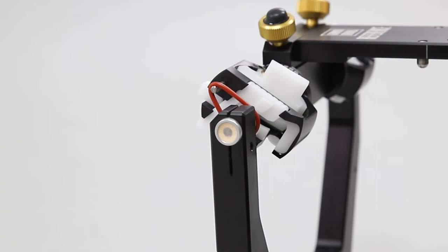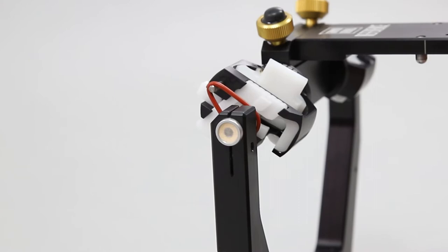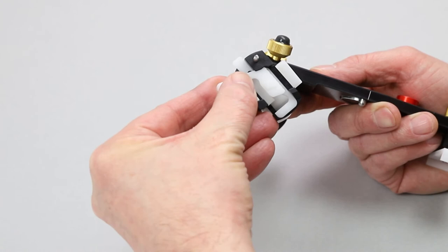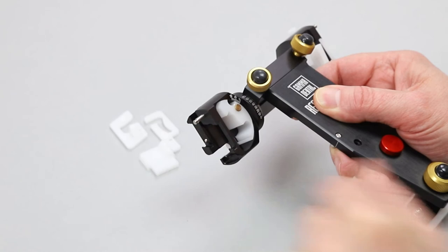For difficult guidance situations, you can use the red O-rings for more feedback from the articulator. These guide elements are interchangeable in order to make the articulator programmed to the individual functional pattern of the patient.